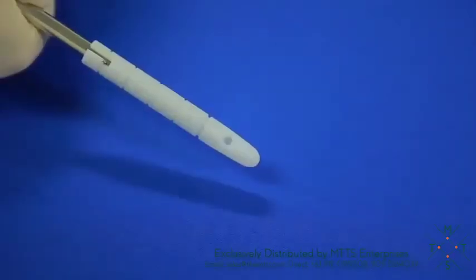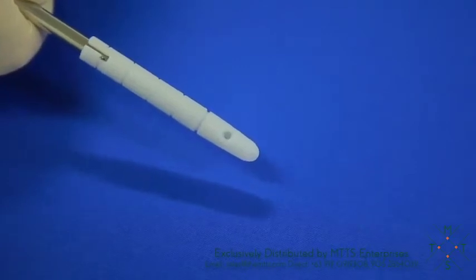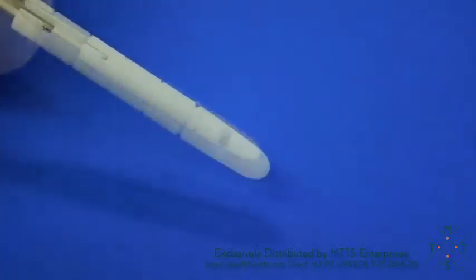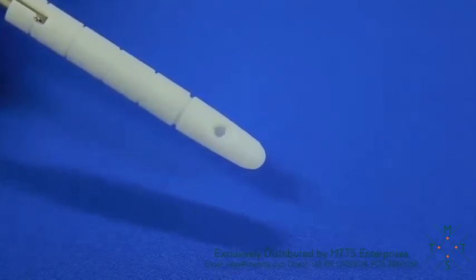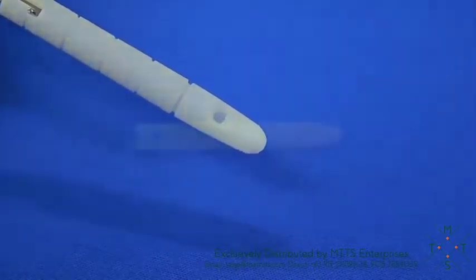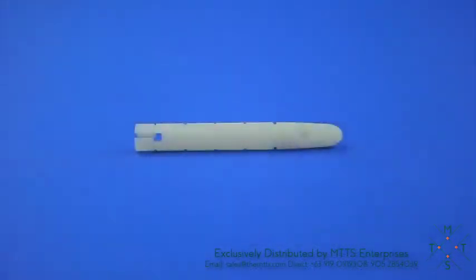The capsule hole has been designed to enable the blade to collide with the front surface of the hole. This acts as a cutting board that allows the blade to cut into the surface to ensure the specimen is cut completely from the biopsy site, preventing the possibility of tissue becoming jammed between the blade and inside of the capsule.